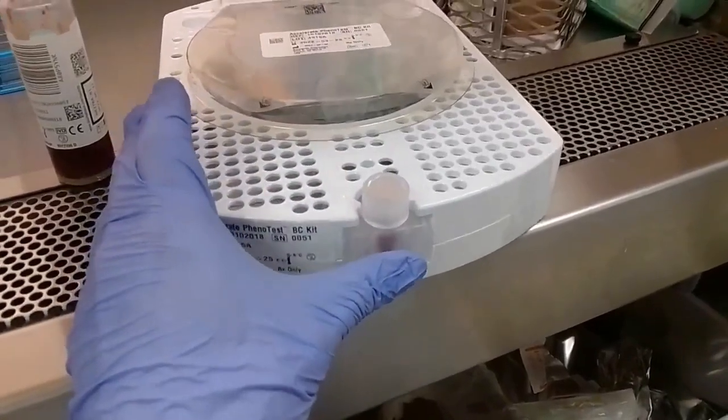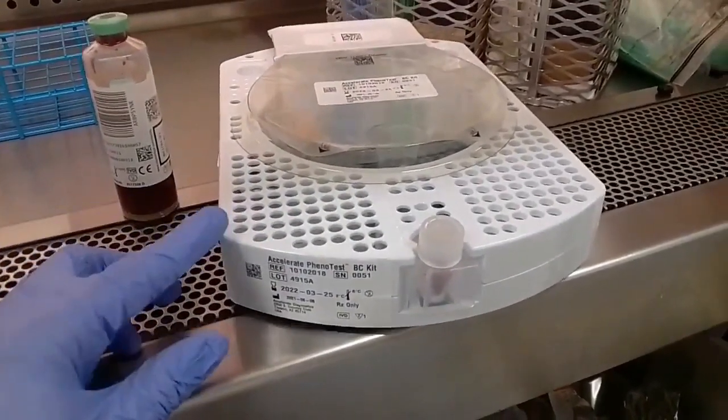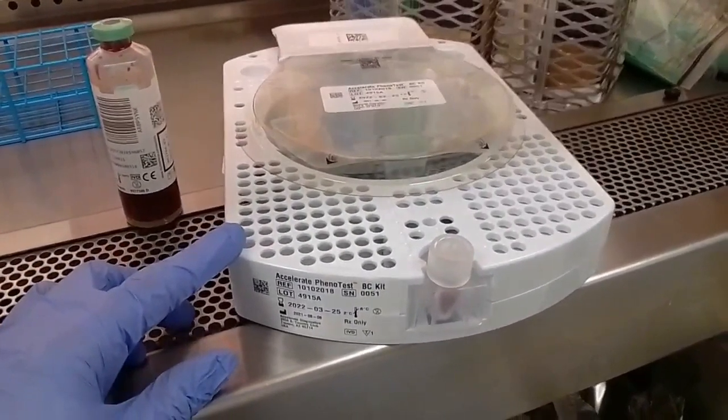What makes this different is that the specimen of choice is blood, so you're going from blood to an ID within an hour and a half. The traditional way a positive blood bottle is worked up is that you do a gram stain and then report something like 'gram positive cocci in clusters' or 'gram negative rod' — and that was the most information you could relay to the patient's nurse.